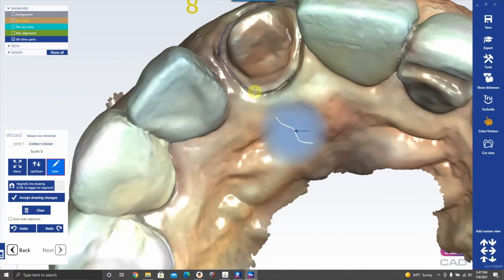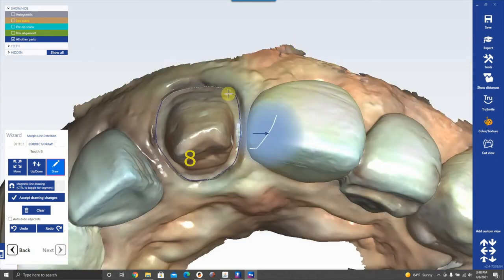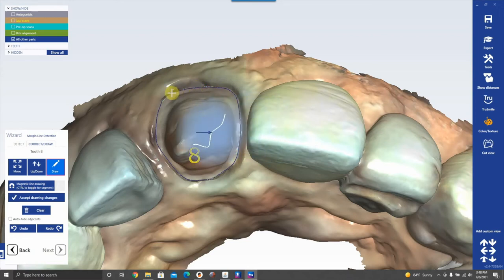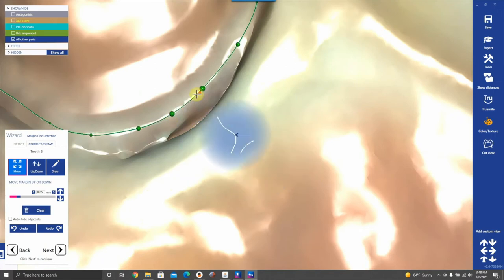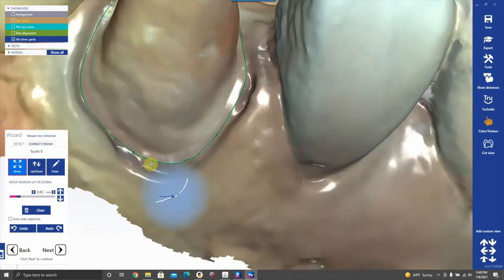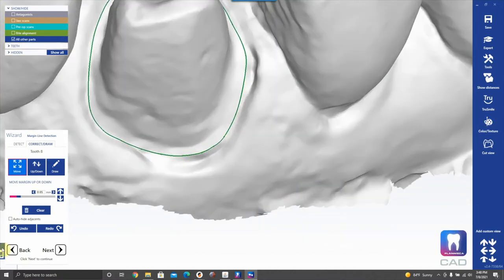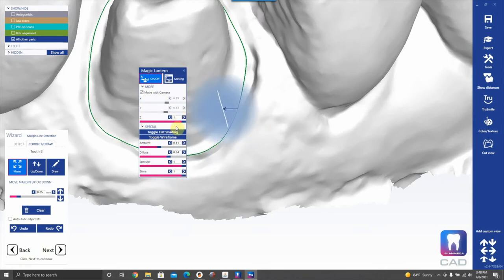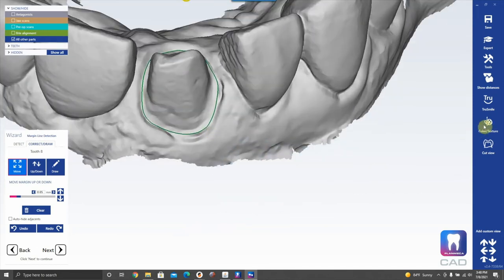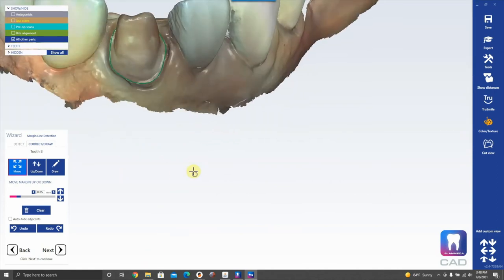I'm going all the way around the tooth. The little window shows the curvature of the surface — you're looking for that hard line, the apex of the curve, which represents the finish line. Once you close the loop, you can drag the control points to edit the margin. Be careful with color — it can be deceiving. Toggle off color and the light reflects right along that finish line. Margin is marked.